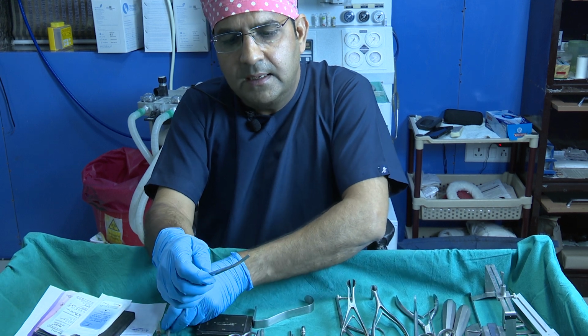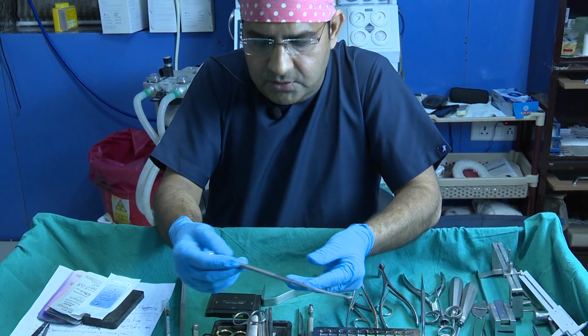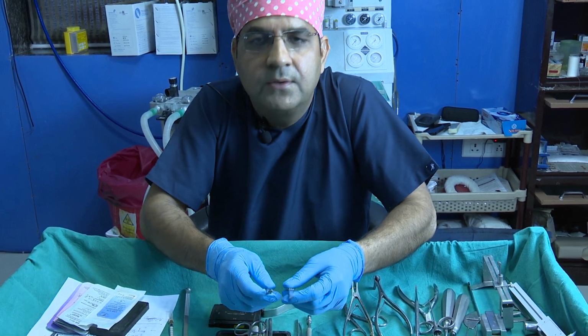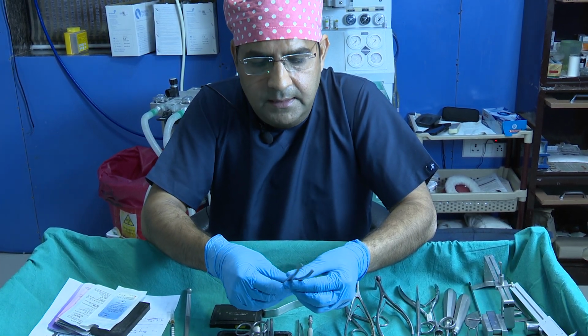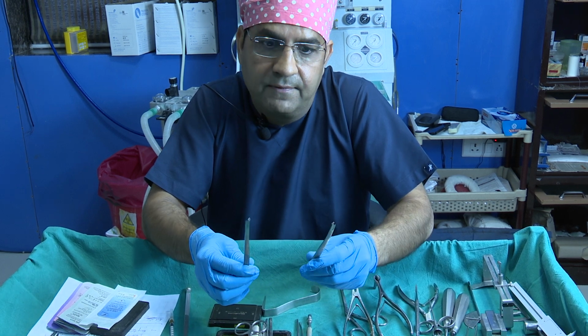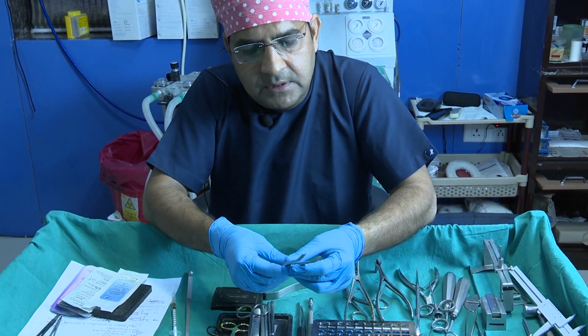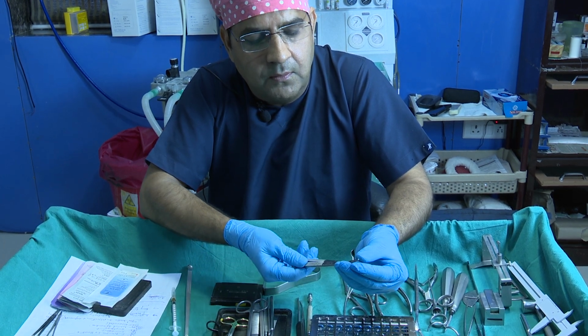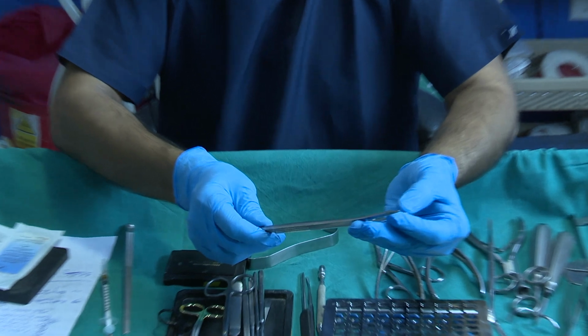Now there is the curved osteotome. When you use the curved osteotome for the internal continuous lateral osteotomy, you use different ones for the right or left side. On either side, outside we have the guarding end and this is the cutting end.